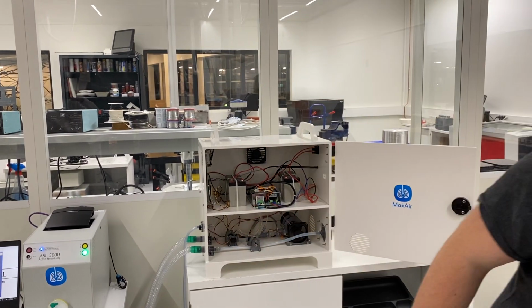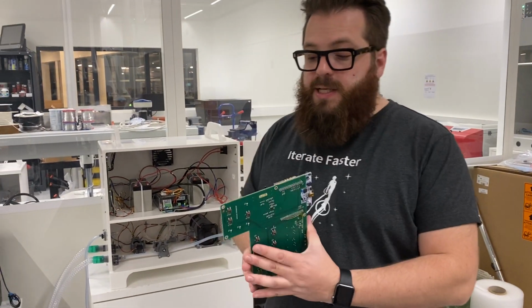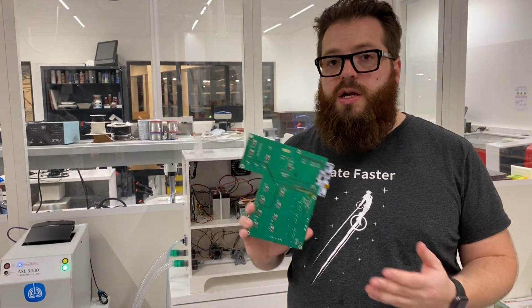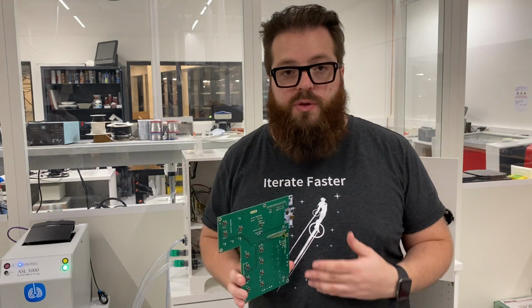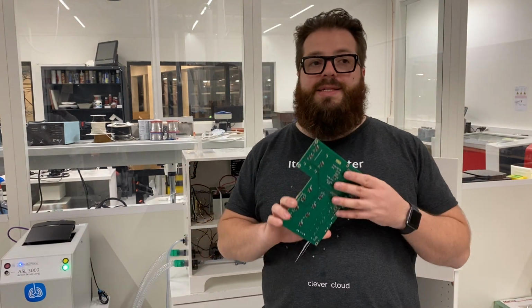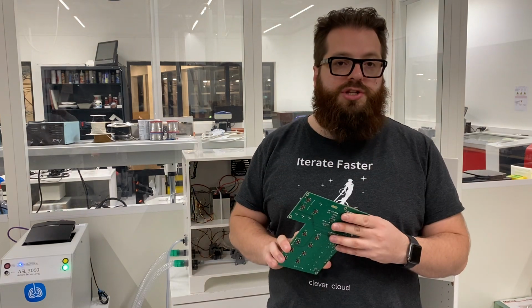Majority of the intelligence of the system is built on the electronics and the code. The code is very focused there. The electronic part is this very simple design, so we can give you the plan of all the PCB and everything, so you can print this very quickly. It's simple. It's not high technology.